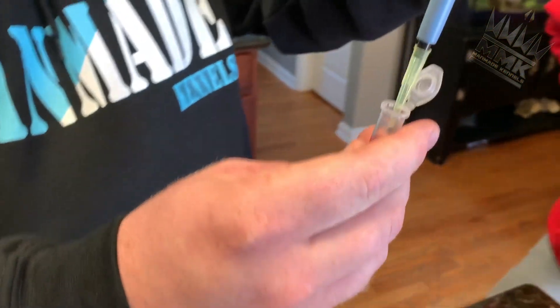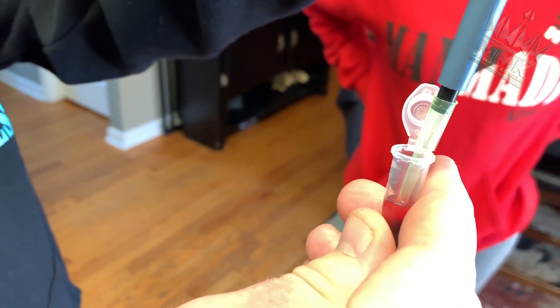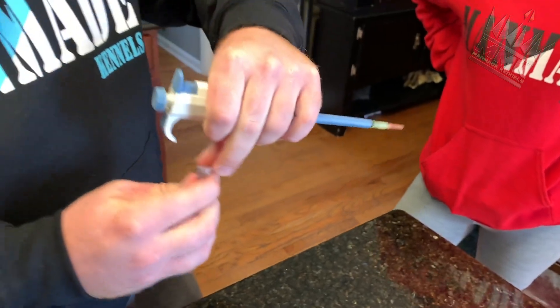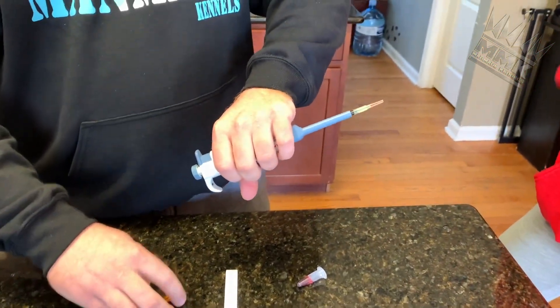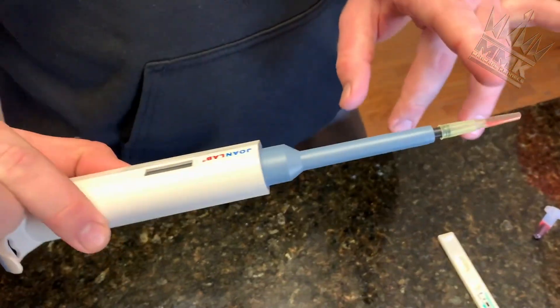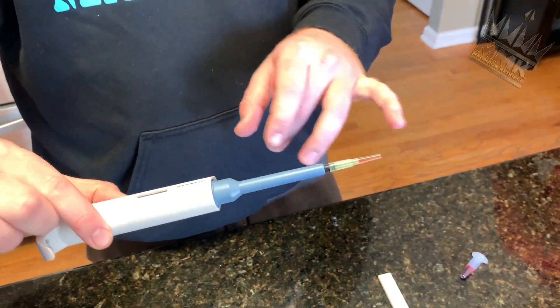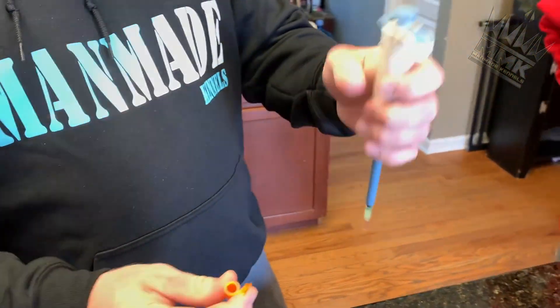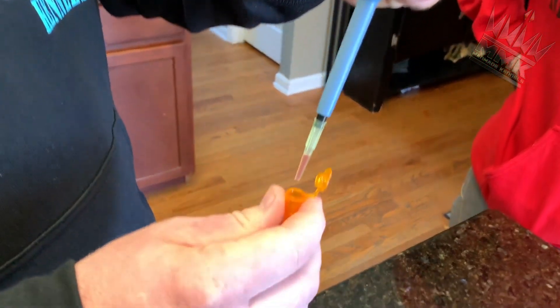So we're going to draw 30 ULs of our serum. And then we're going to add this. How do you know that's 30 ULs? When you calibrate your pipette, it has pictures of the exact measurements. Mine was just previously calibrated, so I know it's on point. So we're going to add our 30 ULs to our buffer.